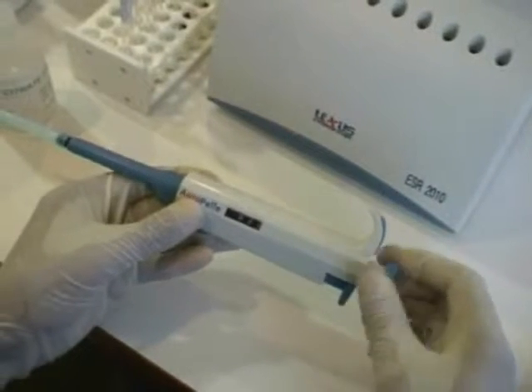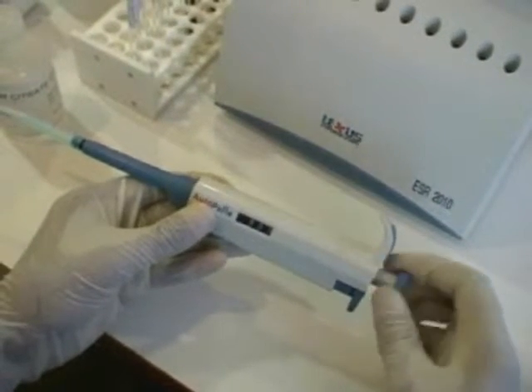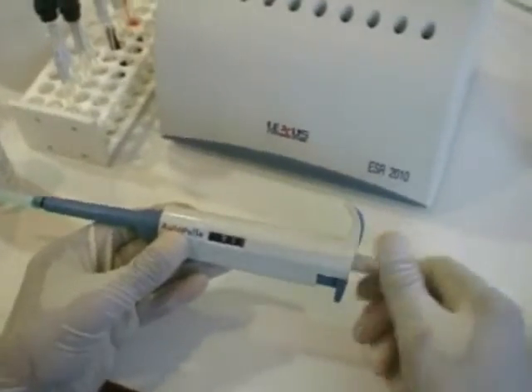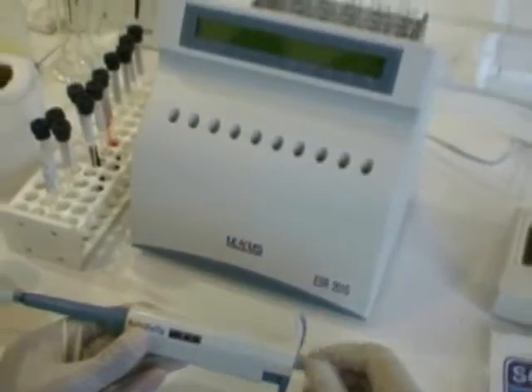Set the volume to 1000 µL to dispense the first installment of a total of 1280 µL of fresh whole blood to the same tube.